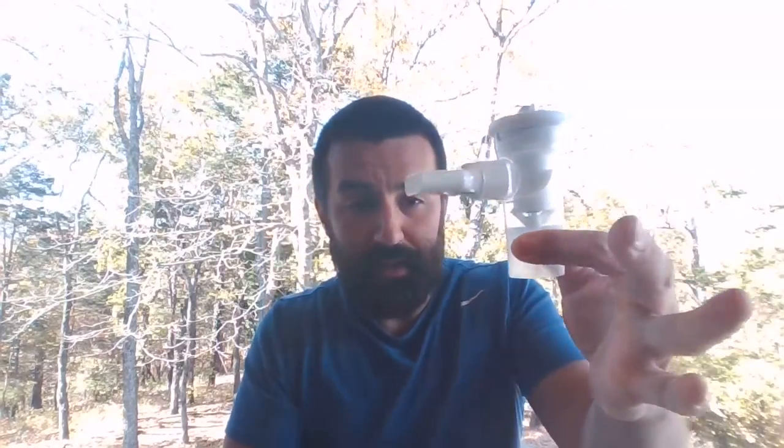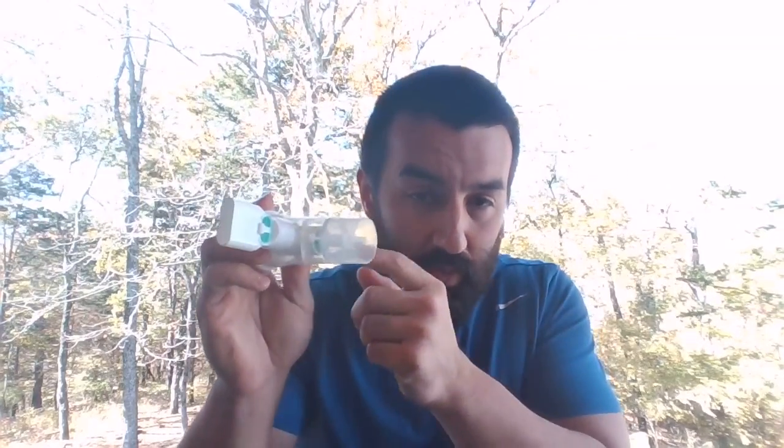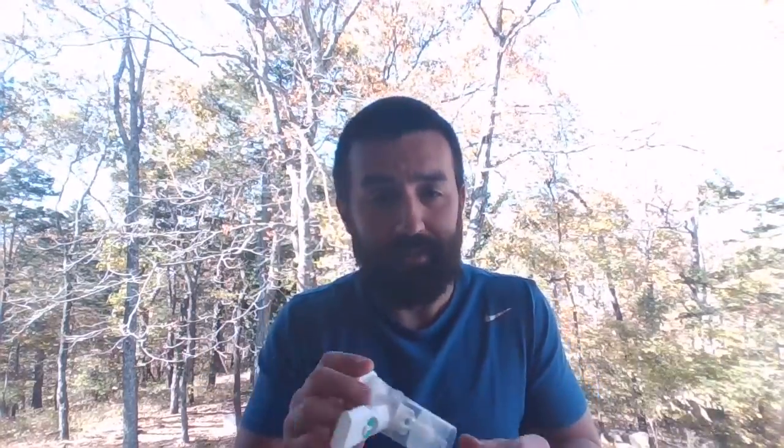So let's talk about how this thing works. If you look, it comes with a mouthpiece built in on it. It still technically is a jet nebulizer, okay? It's got a jet system built in, so we're running this on the same thing. I try and run these on 8. They have a lot more back pressure, so a lot of times you may be able to only get it up to 6 or something like that. I still try and run them on 8 liters, okay? Sometimes you can't go up any higher.